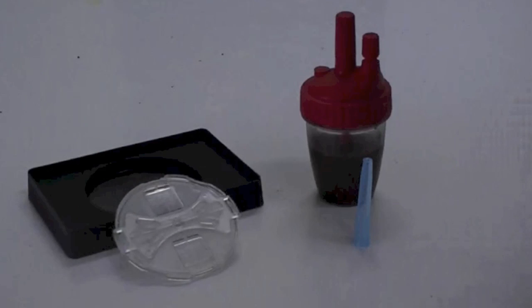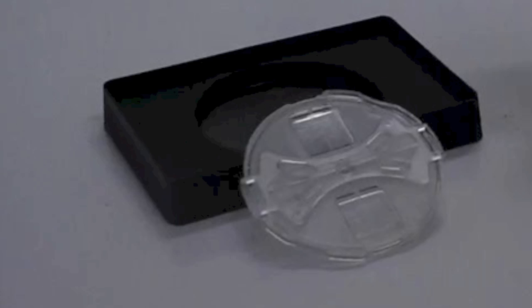In order to fill the mini FLOTAC, it is recommended that you tilt the mini FLOTAC using a 1 cm thick rectangular prism. Make sure that the slits are on top of the chambers.